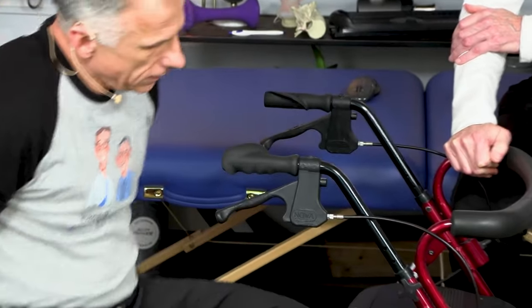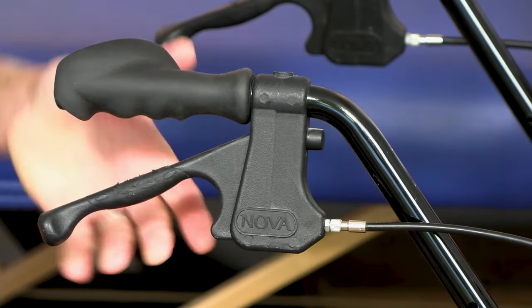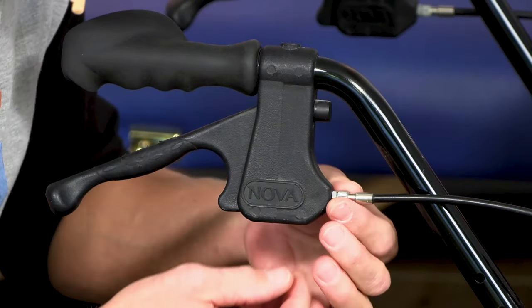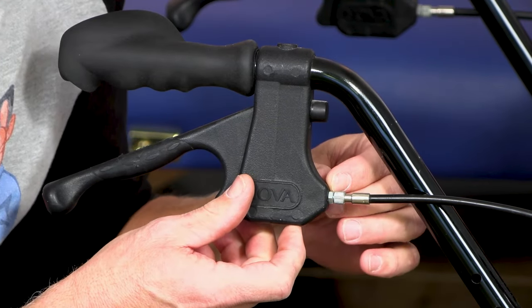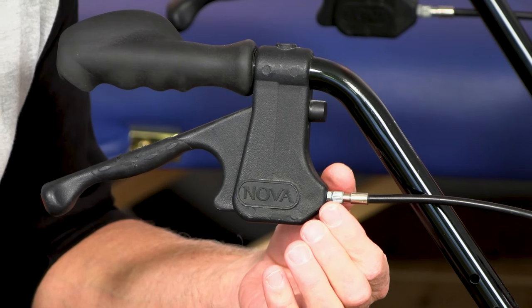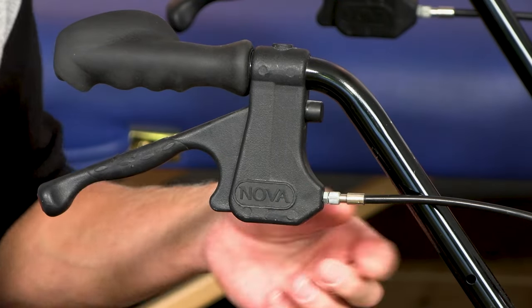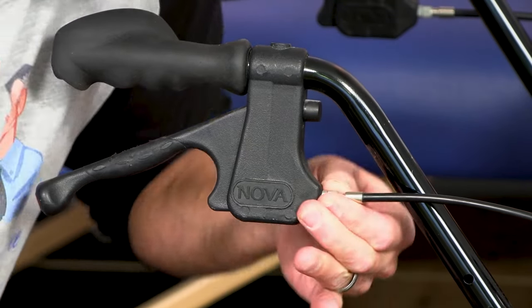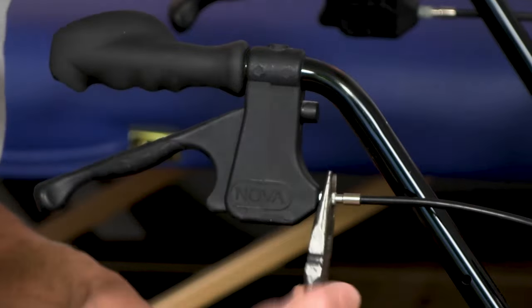Let's zoom in here. There's a mechanism for adjusting the tightness of the cable, which goes through and is responsible for tightening the brakes down below. If we look close, you're going to see this knurled section right here, and then there is a little nut — that's called the lock nut. Sometimes the lock nut on some of these is a large circular knurled piece made for your fingers; this one is made for a wrench. You don't have to have a wrench to do it. If you can start to spin this and get it to move — and if it doesn't, get your pliers on there and you'll get it to move.